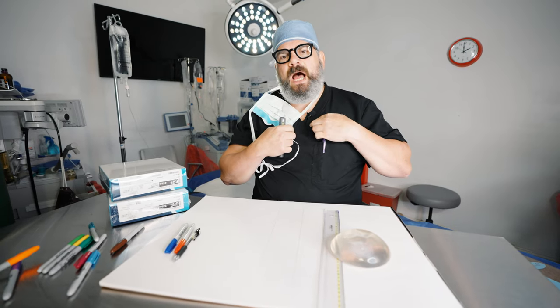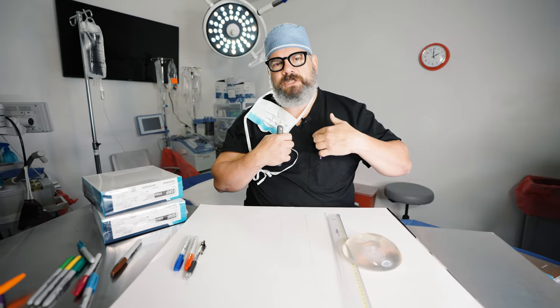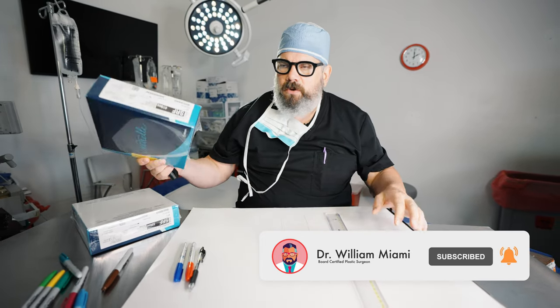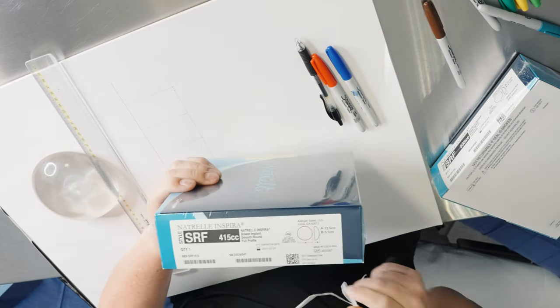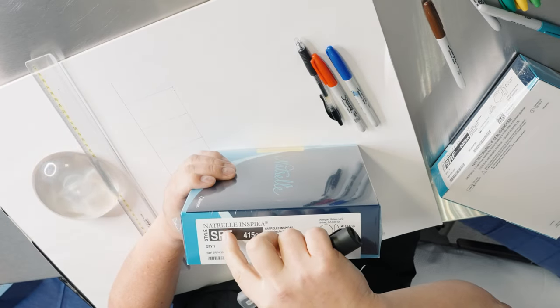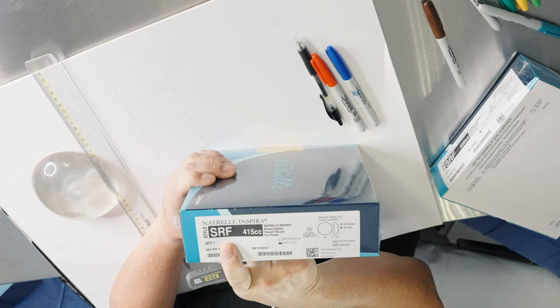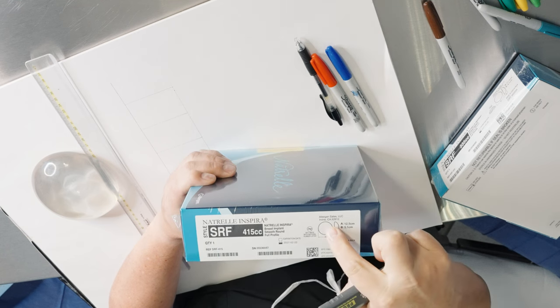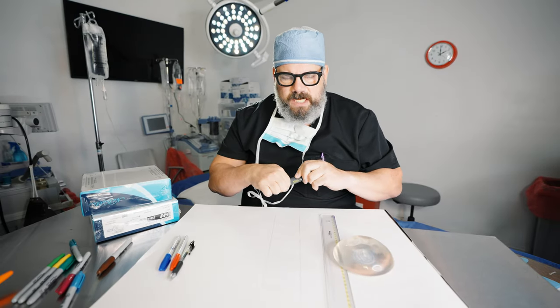Patients are thinking that a high profile means the implant is coming up very high on the chest, but that's not what it means at all — it means something totally different. I want to show you this implant here, which is a full implant, and this is a high profile implant, which I use a lot of times. This is related to these little diagrams over here, and I want to show you the different styles.